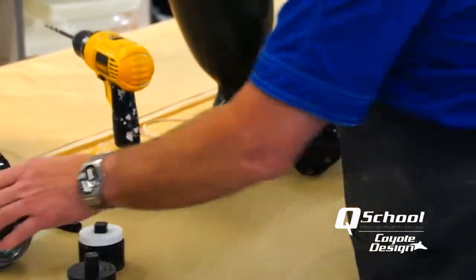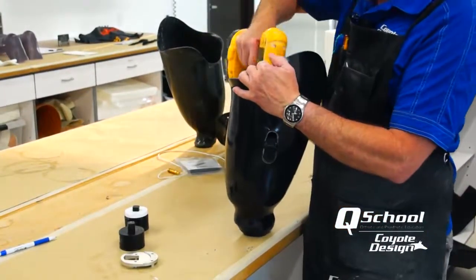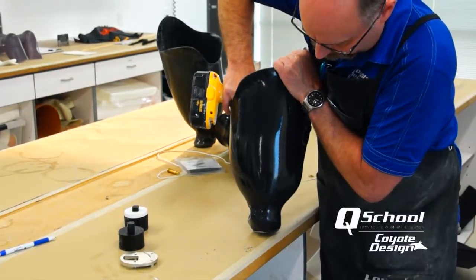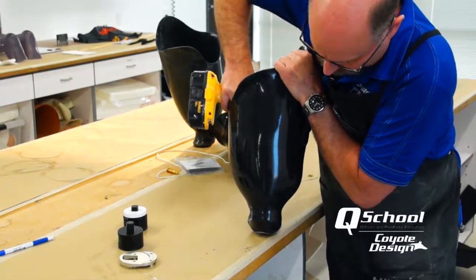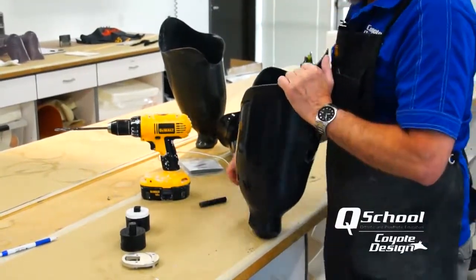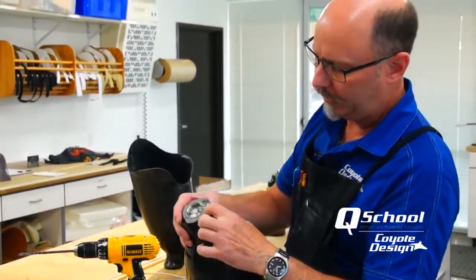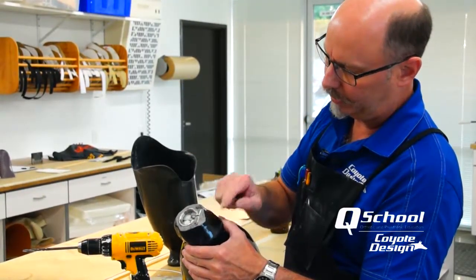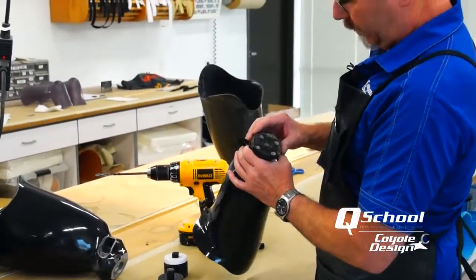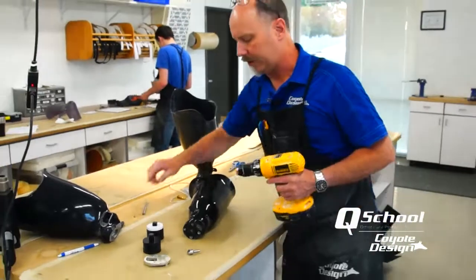Let's take a look at our big one here and see if we can use the guide pin on it. It may not be deep enough, or our drill bit may not be long enough. Nope, we can't make it with the drill bit. But I know from laminating this that my pin is right out here on this corner. So what I'm going to do is just keep sanding until I expose the end of my lock.